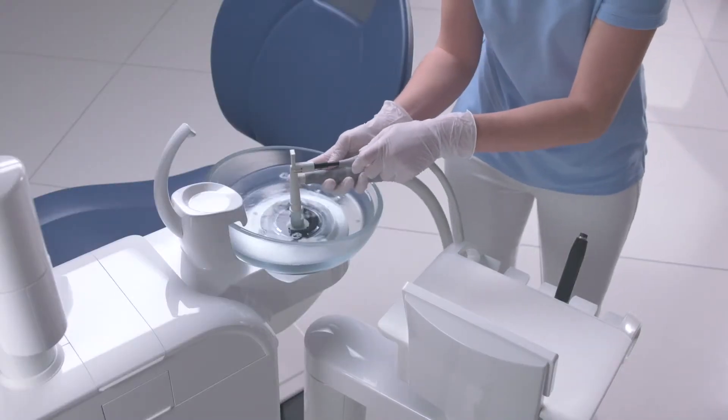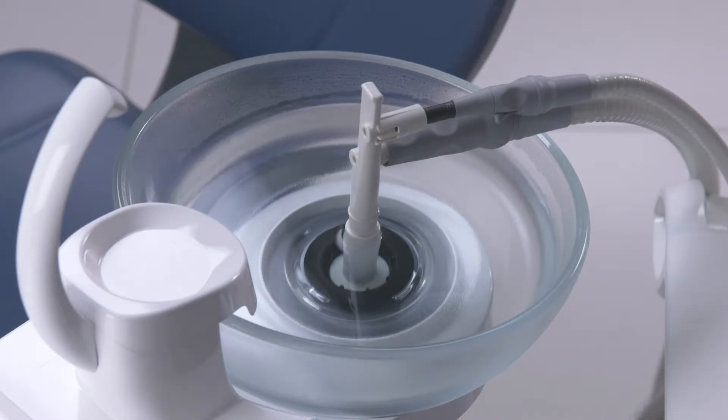Remove the suction hoses from their holders and attach them to the cleaning adapter simultaneously.